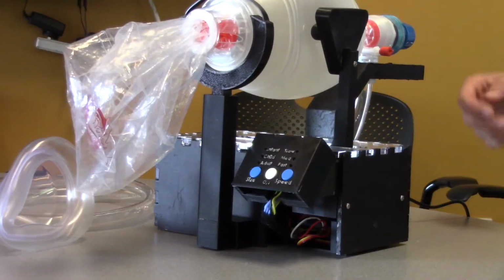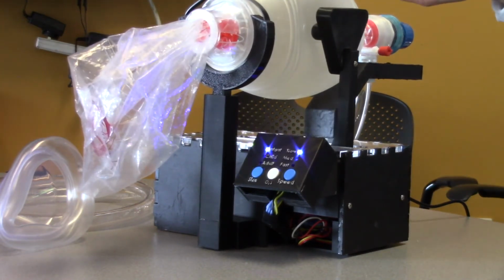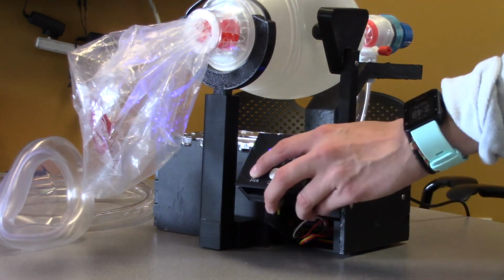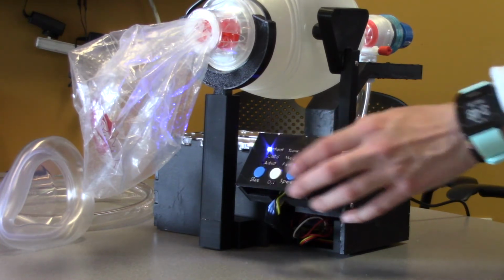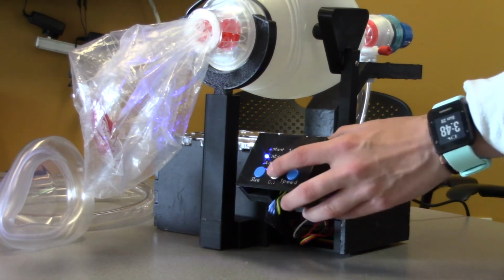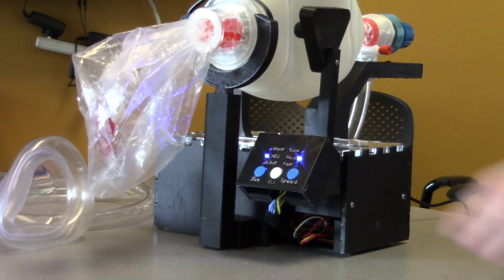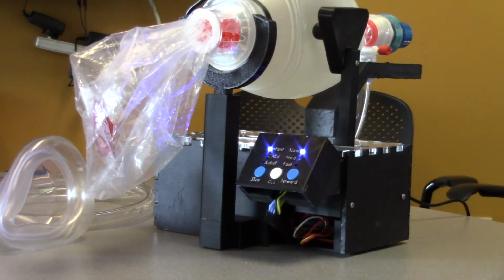So in order to initiate the compression stroke, you first turn on the device, and it goes through a calibration sequence in which it closes the bag completely and opens it. That will allow the motor to know the full range of motion. We then use the user interface to select the different settings between infant, child, adult, and slow, medium, and fast. So if I want to bag a child at medium, then I would go to child, medium, and then press the white button, which will initiate the compression. And when I want to stop the compression, I hold the white button and let go. And then I can choose a different setting.